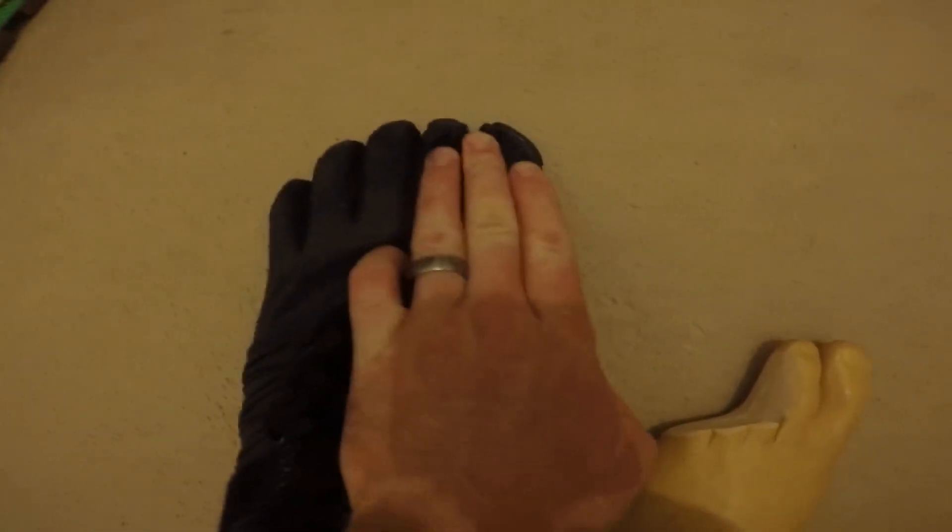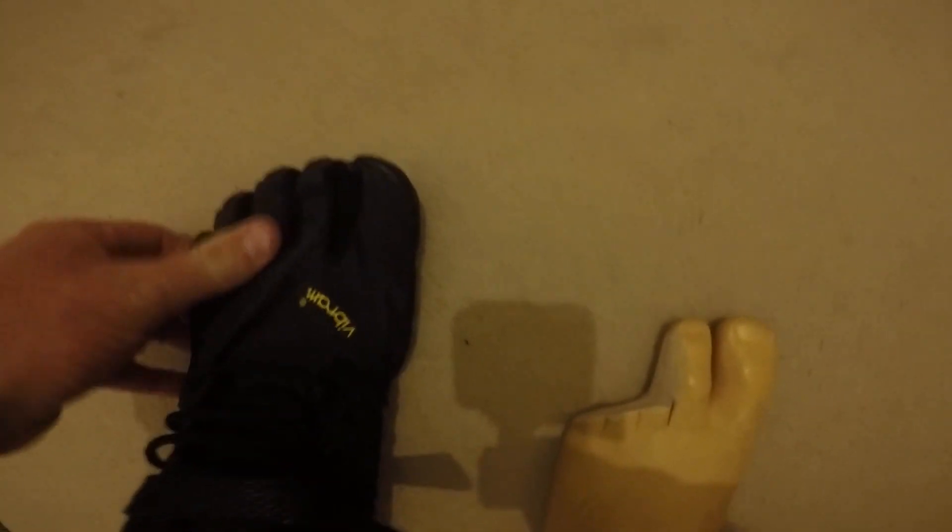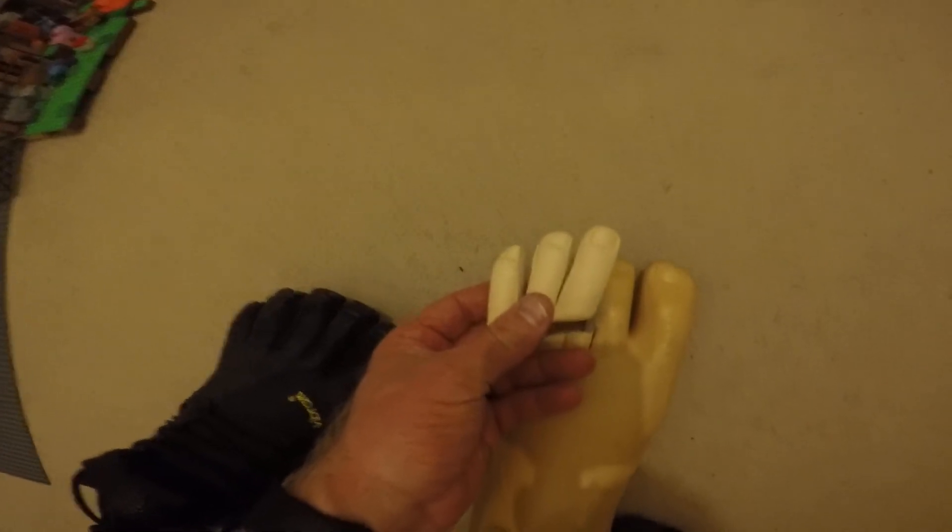I'll show you here. I've had the big toe and the one beside it, as we mentioned - it's got the gap in there. I've taken off the small three toes. And inside here, this is still a big toe and one beside it that can go in. And there, gel felt. And there, gel felt, which also can come out. There you go.